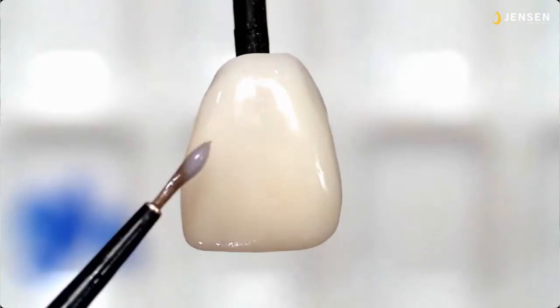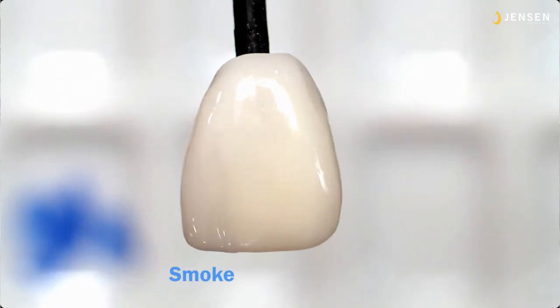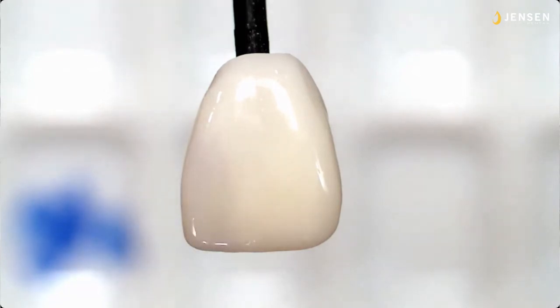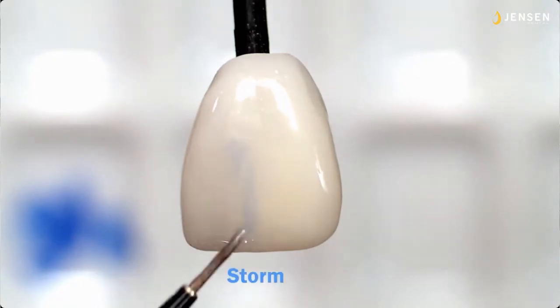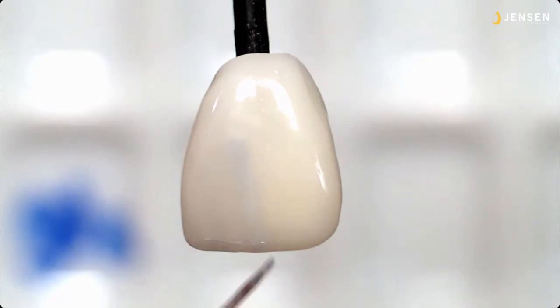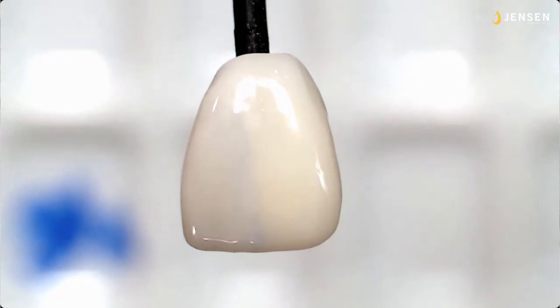So here is the smoke. You see the violet gray? And the smoke is very safe, and the smoke will lower value very slightly, but it won't make it look like it's totally translucent, like a proximal incisal window or the halo above an incisal edge. So here's the storm. This is what will make it look like that. But mind you, I have all three of these thinned down to the same consistency, just to give you an idea. And in orders of magnitude, the storm is about twice as intense as the smoke. Now it's thinned down so it doesn't look super crazy right there.